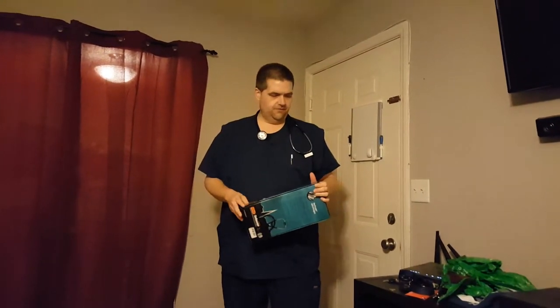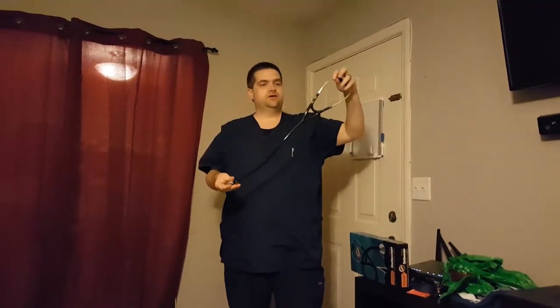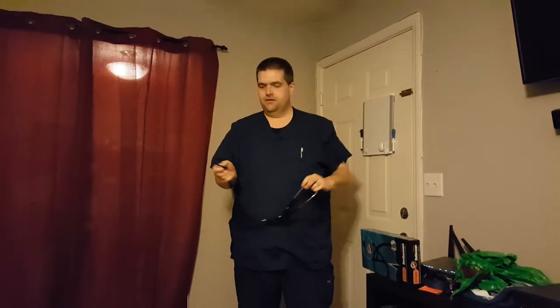It's a pretty nice piece of equipment here. It comes with a few additives — I'll tell you about those in a second. You've got the stethoscope; it's cardiology, it's a single head design. You use pressure for when you're wanting to get the differences in the sounds and all that. Tunable diaphragm. It's got the no cold ring on it so that when you touch the patient's chest they're comfortable. Another thing we got here is a little place that you can put your name on there.